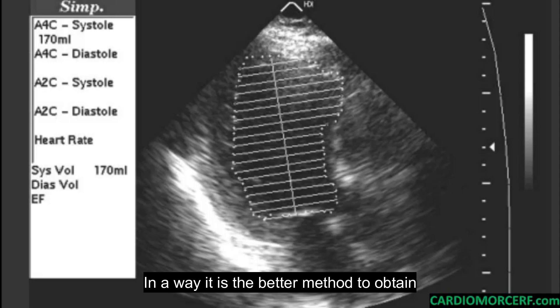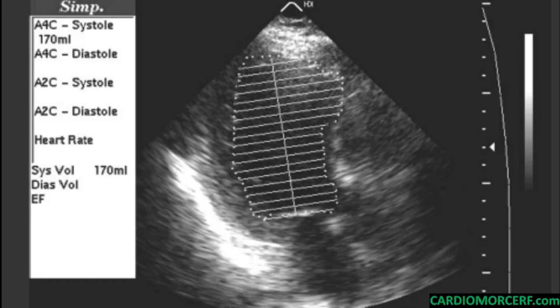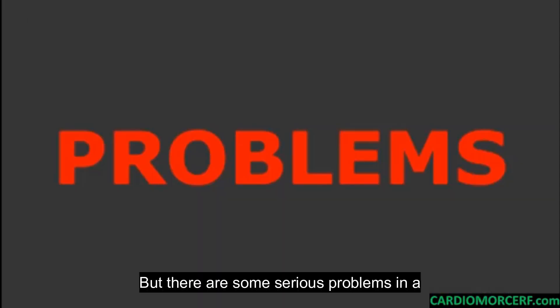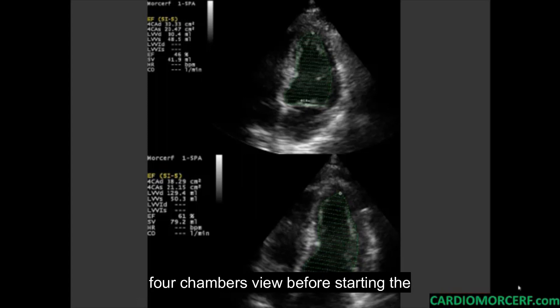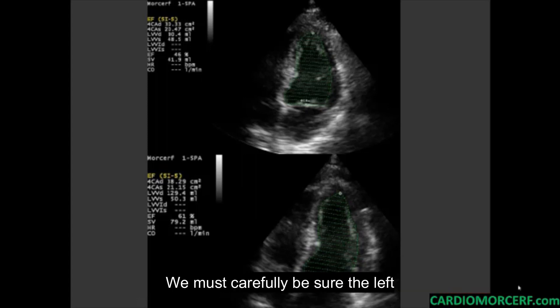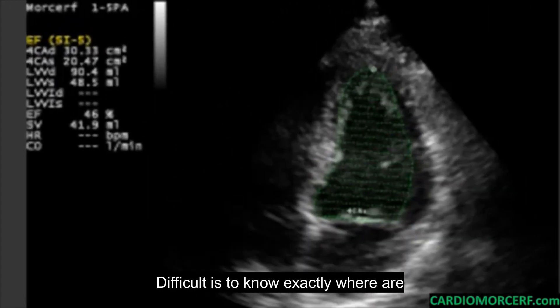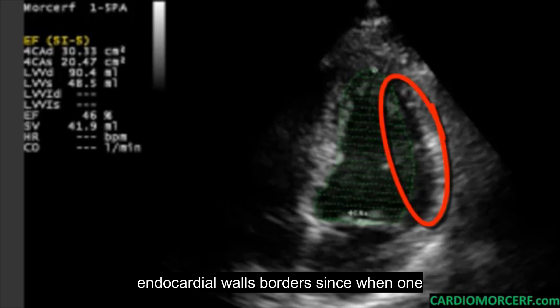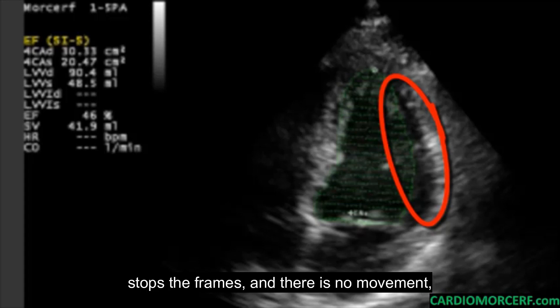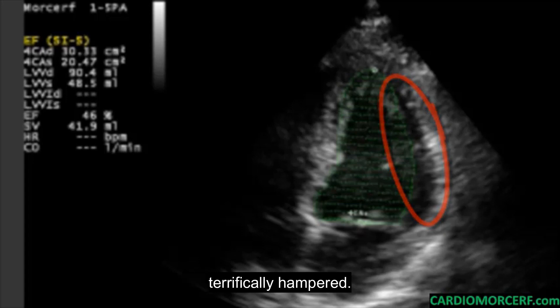In a way, it is the better method to obtain a volume and the ejection fraction. But there are some serious problems. In a four-chamber view, before starting the planimetry, we must carefully be sure the left ventricle is not foreshortened. It is difficult to know exactly where the endocardial wall borders are, since when one stops the frames and there is no movement, the identification of these boundaries is very challenging.